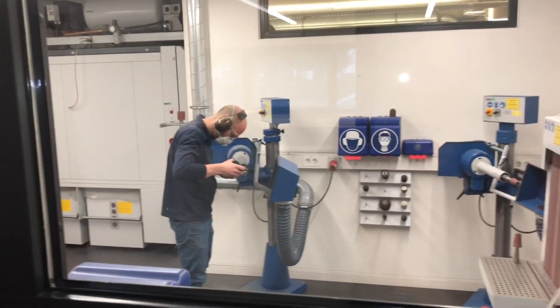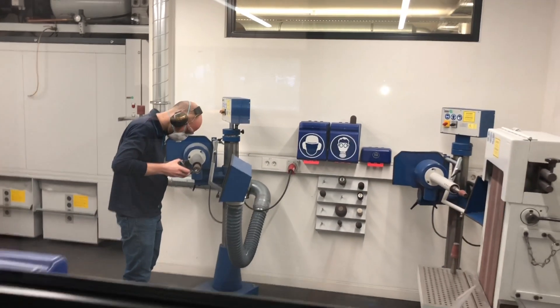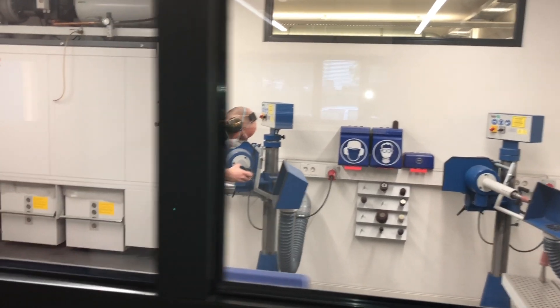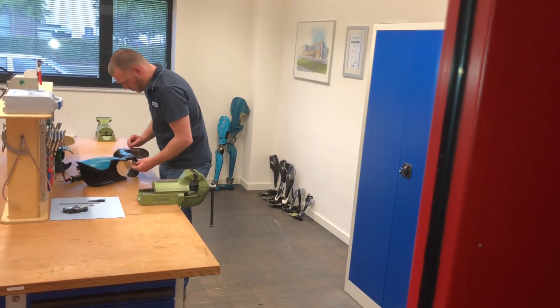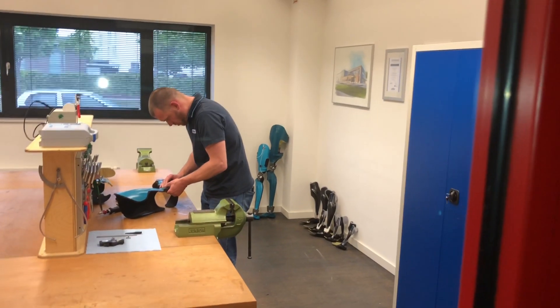As you will see in a moment, David here is still working hard and finishing a sample orthosis, but that's not what's so exciting. What I would like to show you, which is more interesting, is what is taking place in our mechanic room. Sebastian is working there right now. He is fitting our new joint. Let's go in and watch him.